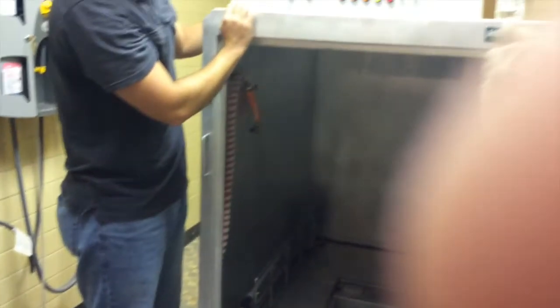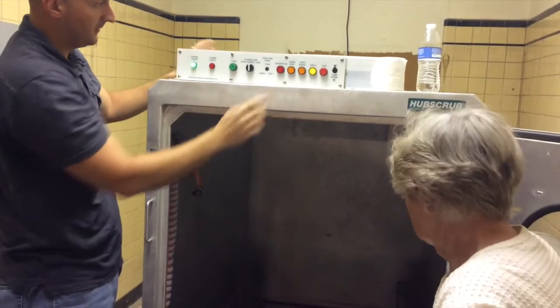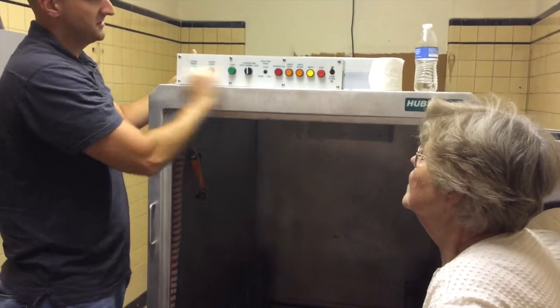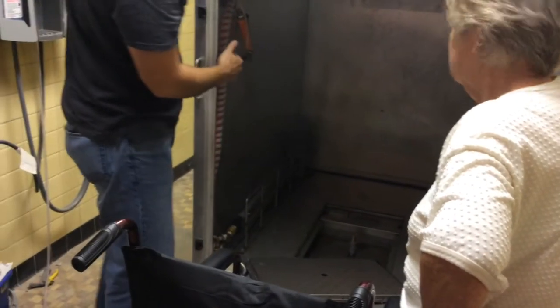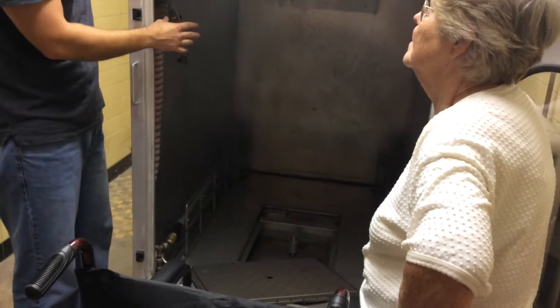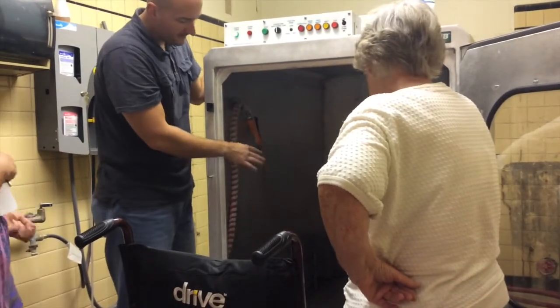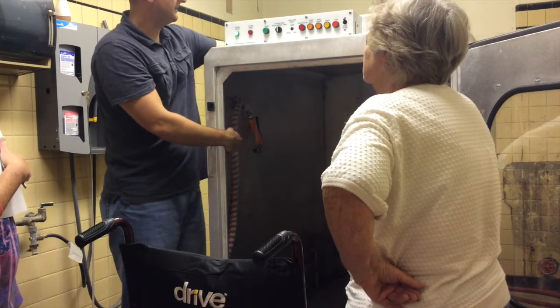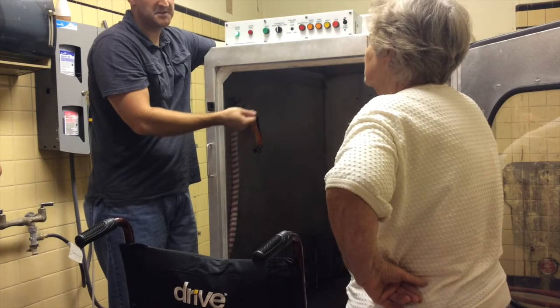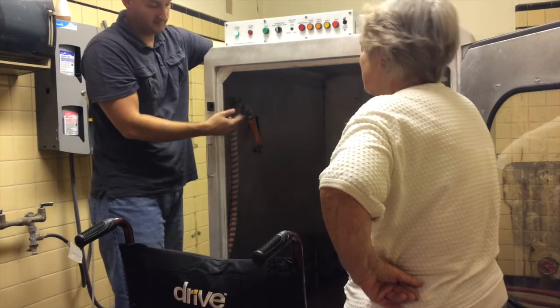One thing: we have the greatest tool to work on ours and his name is Jason — he was the one that did the plumbing. As far as cleaning filters, I've never done it because I just call Jason. The filter itself is down inside here; you can see the drain is right there. You can pull that filter out — it's kind of like a sink drain. We had them stop up one time because we were putting in extremely dirty stuff — cobwebs, dust, grime, everything — and it clogged the hole. He had to disconnect the hose in the back and snaked a shop vac in there to pull out all the gunk and hair, and vacuumed it all out perfectly fine.